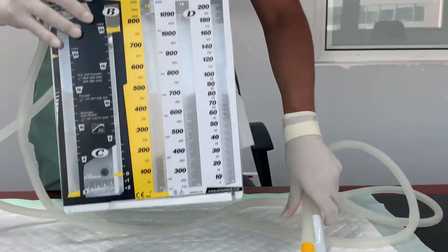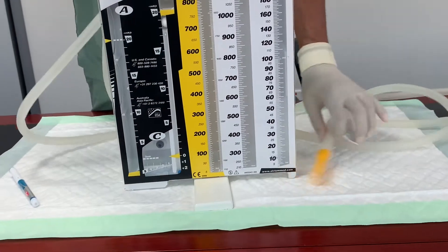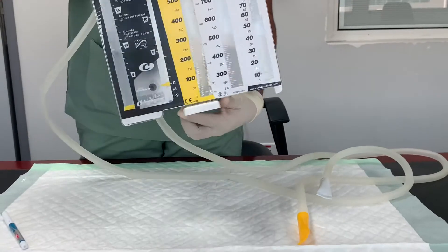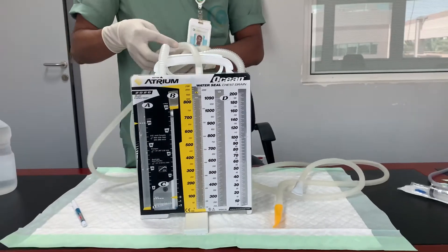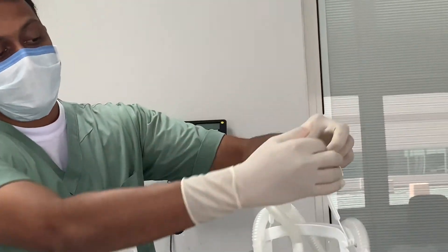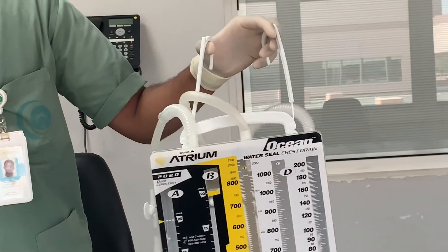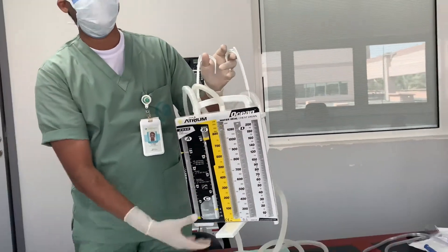The first part I would like to introduce is the base. If you keep the base locked and place it on the floor, there is no chance it will fall down. Being a nurse at the bedside, when you keep the chest tube drainage system on the floor, you must lock it so the cross provides a good stand. We also have hangers available, which can be hung on the bed frame. These are especially useful during transportation, preventing spillage due to falling.